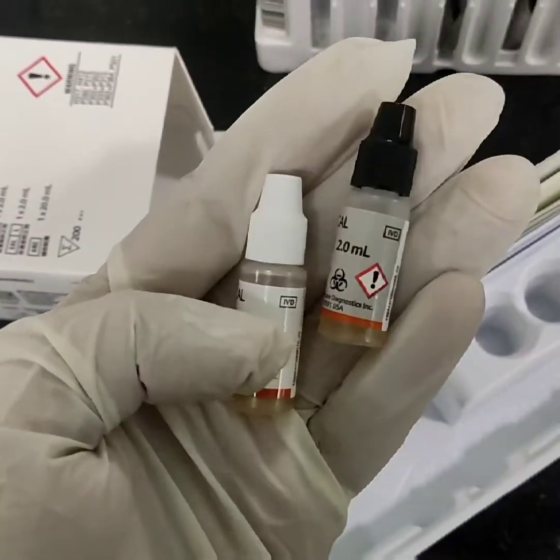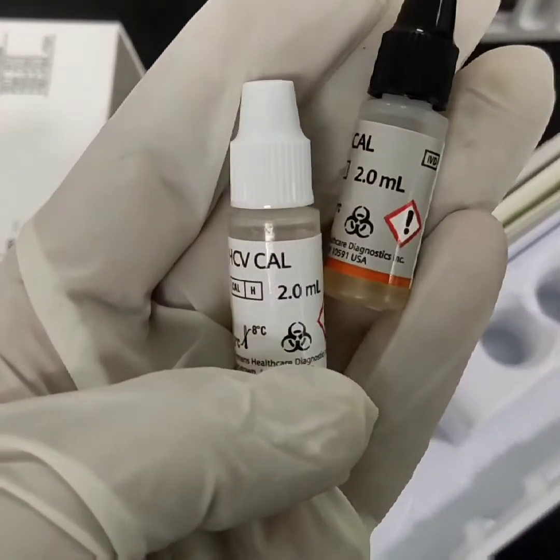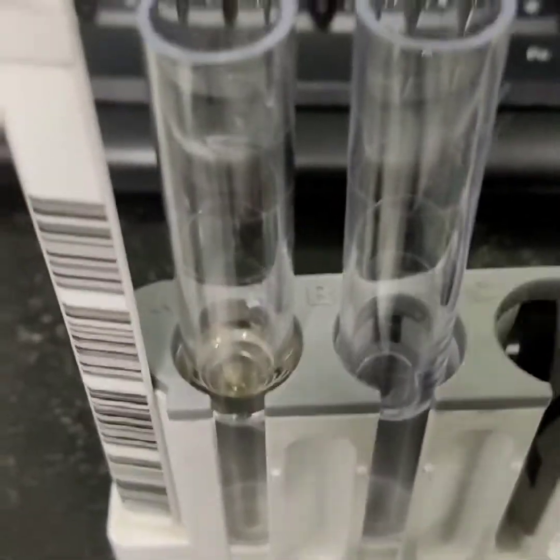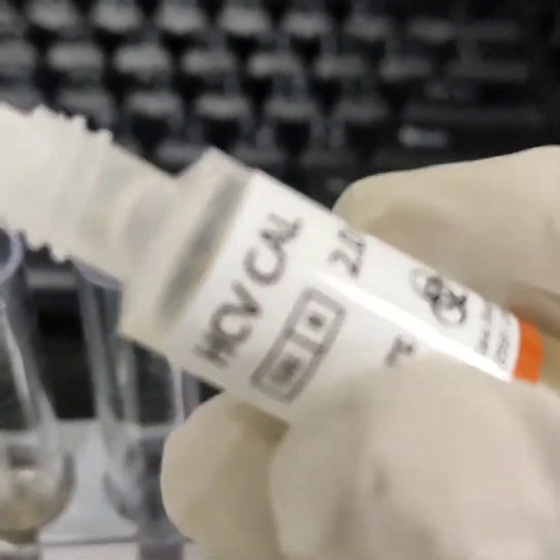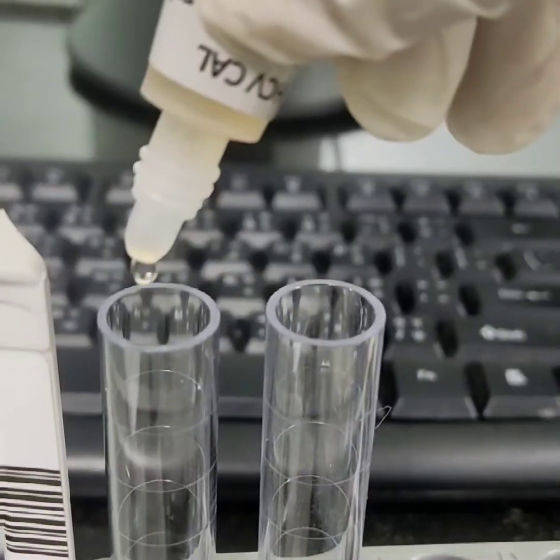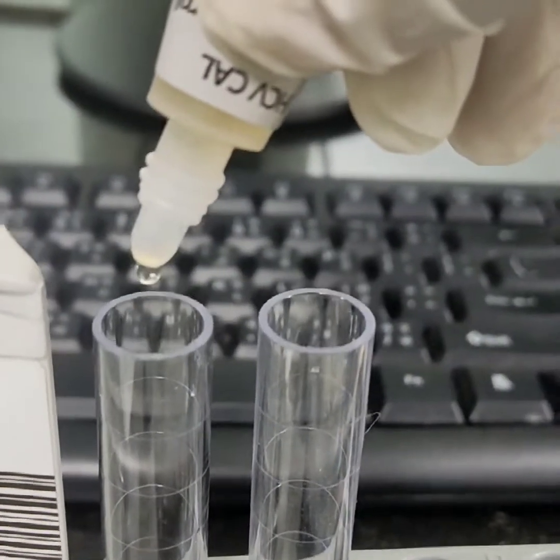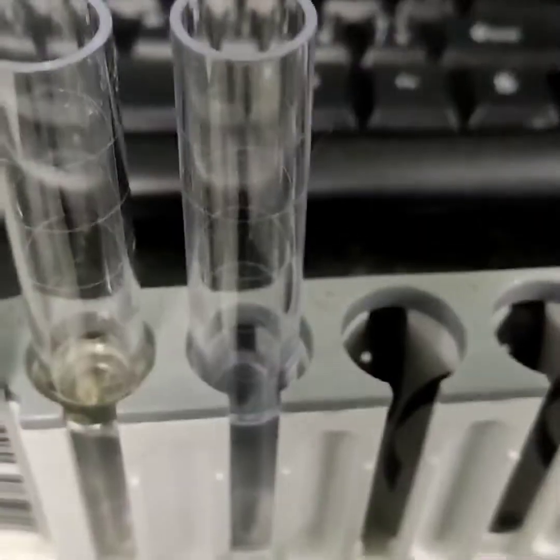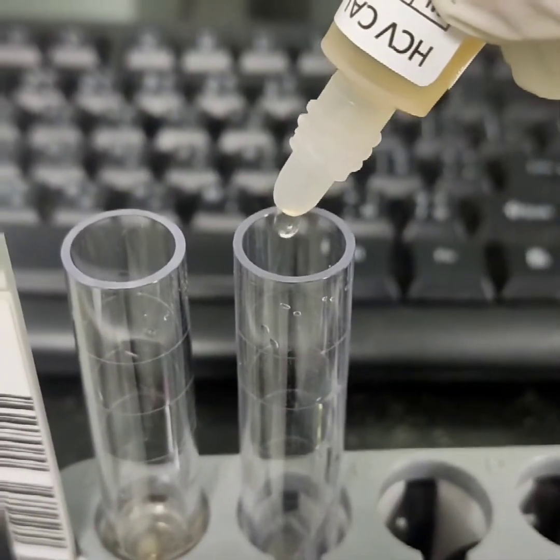We will be provided two HCV sets of calibrator containing high and low, each with the reagent. We will prepare a rack inserted with tubes and dispense approximately 400 microliters of low calibrator in the first tube at position A, followed by high calibrator in the second tube at position B.